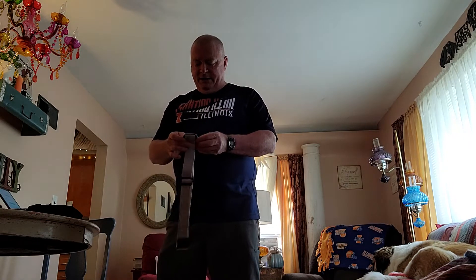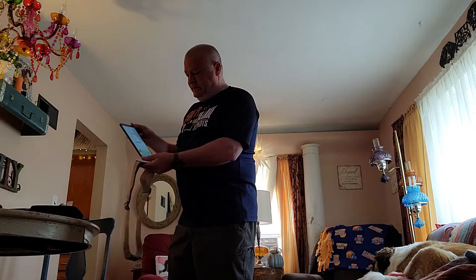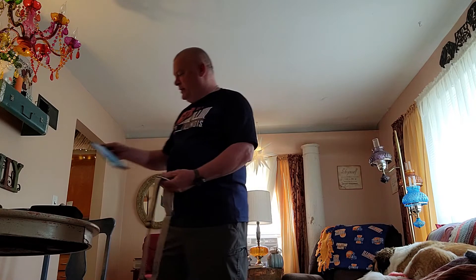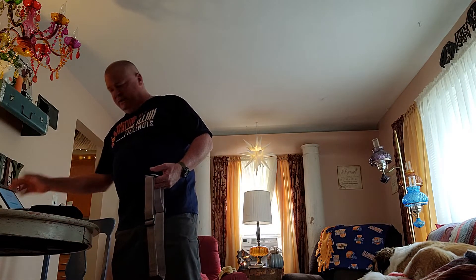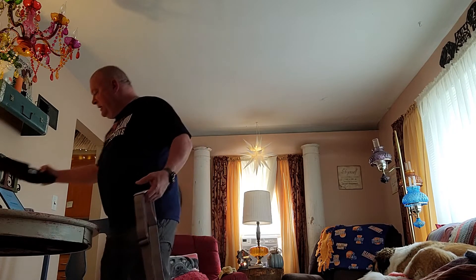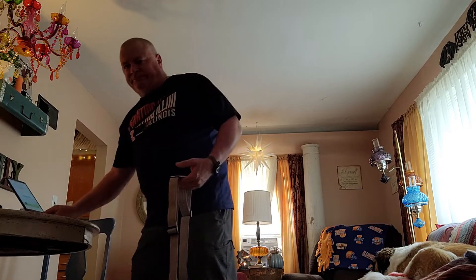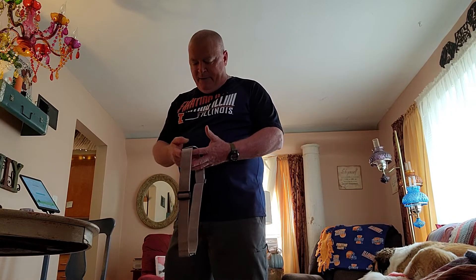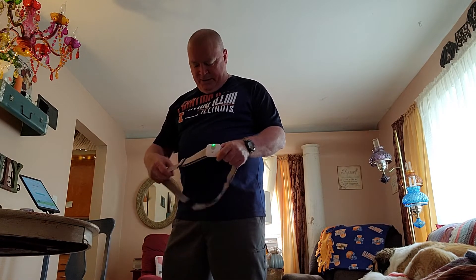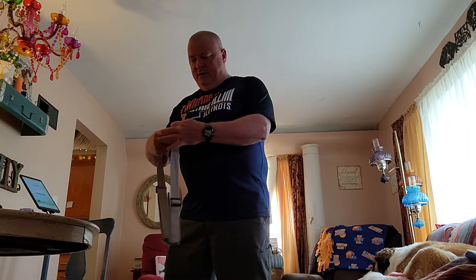A lot of people want to see what it is, so it comes with two sensors that you put on, and it comes with this screen that shows you the exercises to do. It even comes with a stand. So what you do is you turn these on — this one goes around the waist.